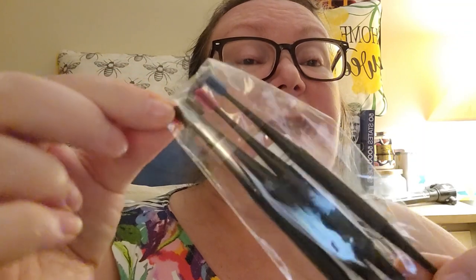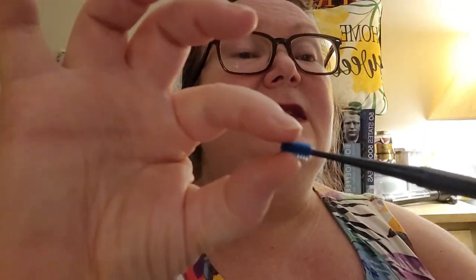There are these little silicone pieces. Let me take one out. This is silicone, it's really soft. This is another end that I guess you can twist around and get some wax. I might try this right now out of curiosity. Ooh, I got some — I don't know if you can tell — on the tip. Yeah, I got a little.